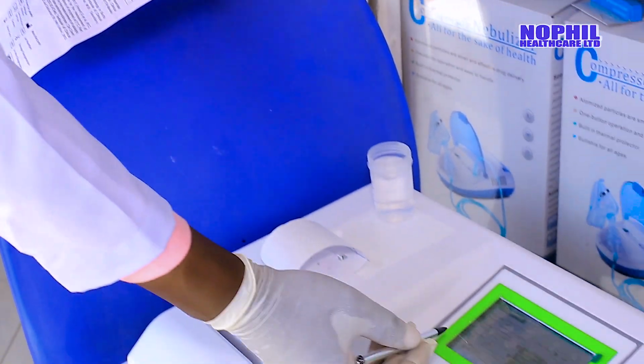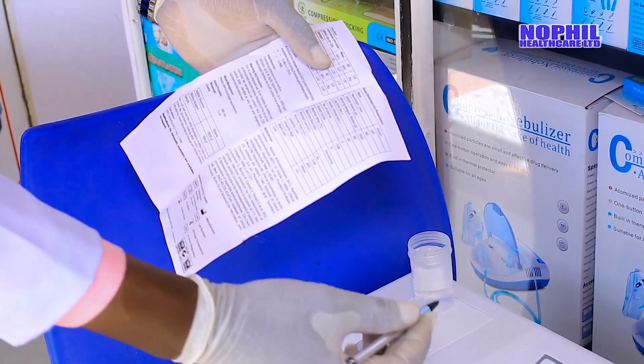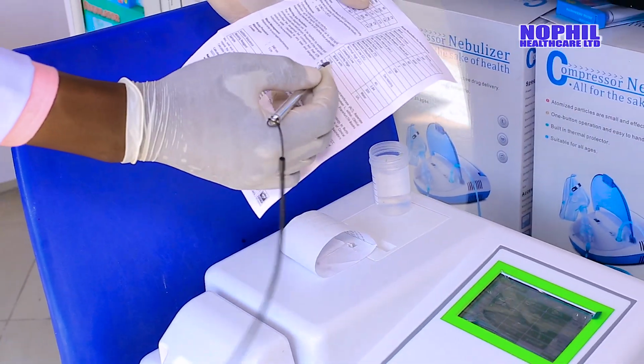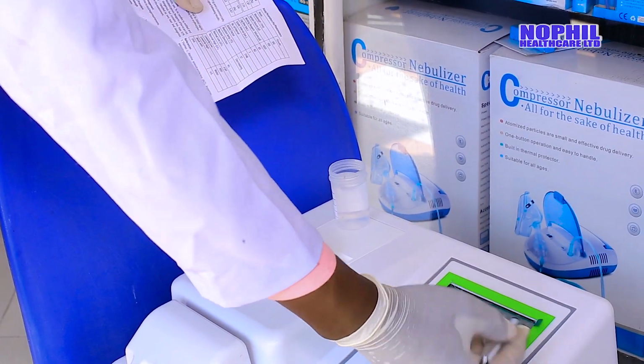One of them here you can see is kinetic, and another one you can see there is the wavelength. The unit is there, and another function there has 340, that's the wavelength.